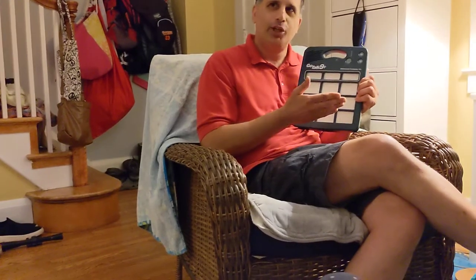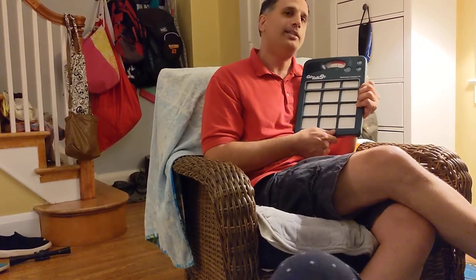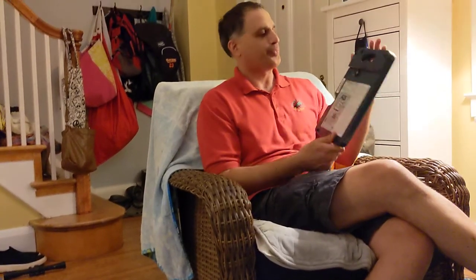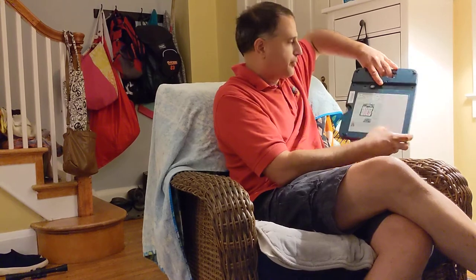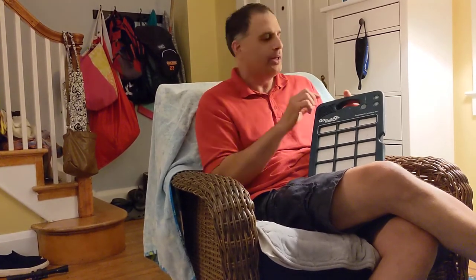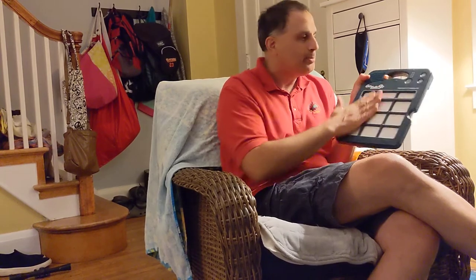The device — if you remember from the beginning of this video — was locked so that nobody could change the words. Right now it's not locked; I've unlocked it so I could do that. So, the last thing I'm going to show you is how to lock up the device again so that nobody can record over it and nobody can use the level-changing feature. What you do is hold down the record button and press the up key, then release it and release the record button. That locks one thing — either the level or the programming. Then do the same thing again: hold down the record button, keep it down, then press the down volume and release that, then release the record button.